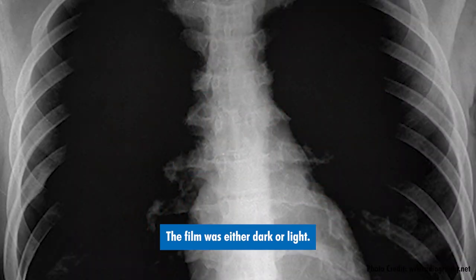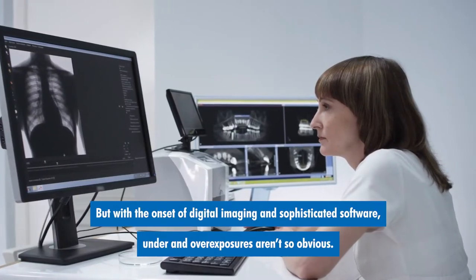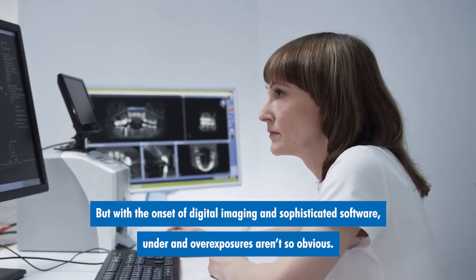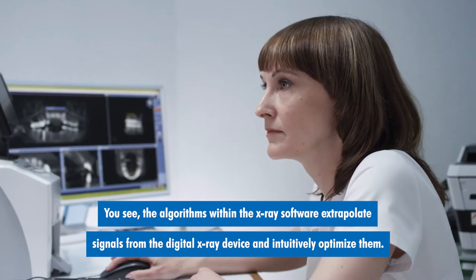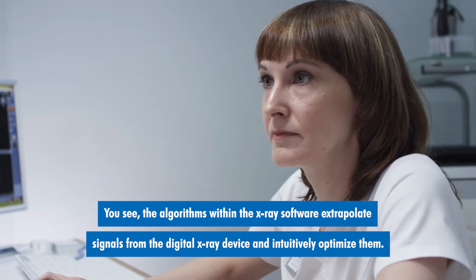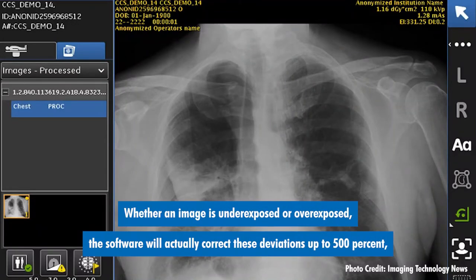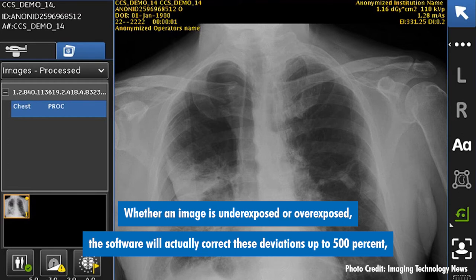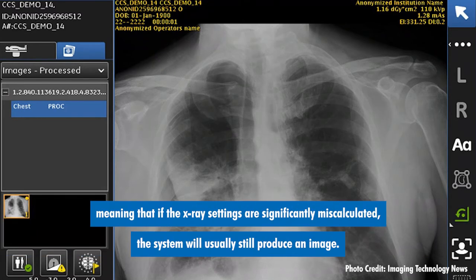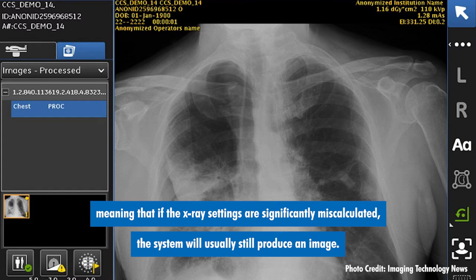The film was either dark or light — it was a cut and dry scenario. But with the onset of digital imaging and sophisticated software, under and over exposures aren't so obvious. The algorithms within the x-ray software extrapolate signals from the digital x-ray device and intuitively optimize them, and the software will actually correct these deviations up to 500%, meaning that if the x-ray settings are significantly miscalculated, the system will usually still produce an image.